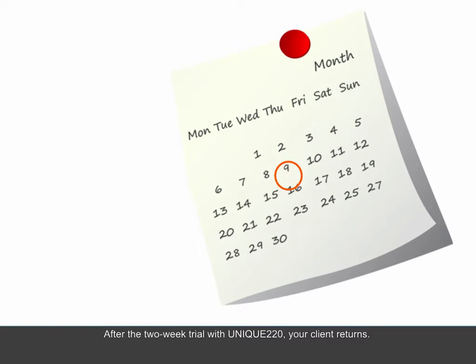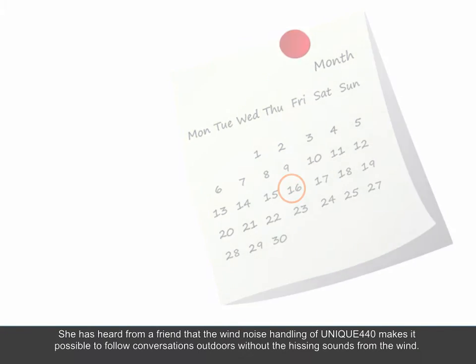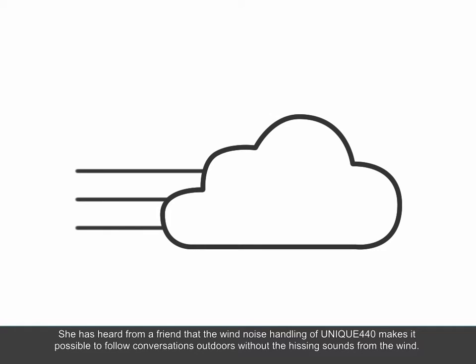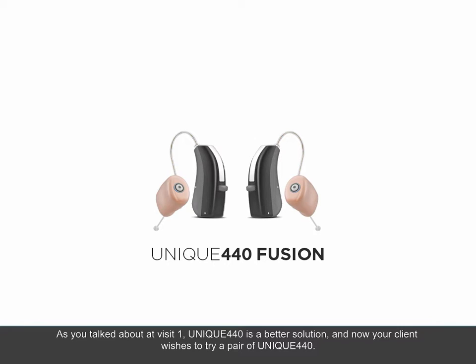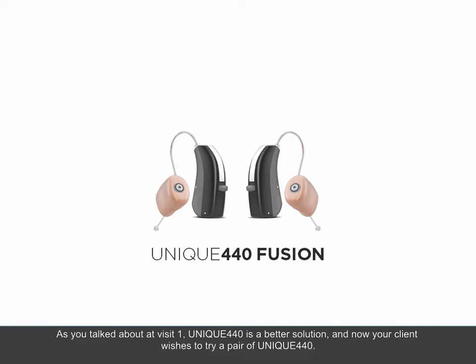After the two-week trial with Unique 220, your client returns. She has heard from a friend that the wind noise handling of Unique 440 makes it possible to follow conversations outdoors without the hissing sounds from the wind. As you talked about at Visit 1, Unique 440 is a better solution, and now your client wishes to try a pair of Unique 440.